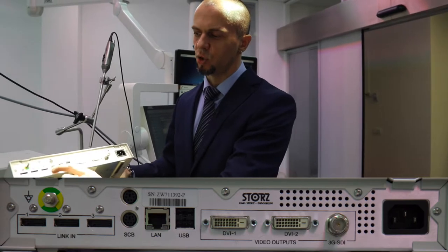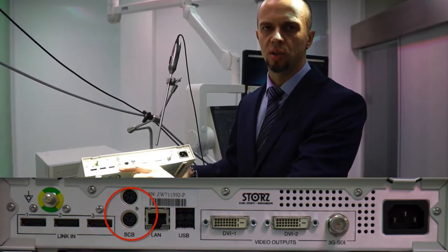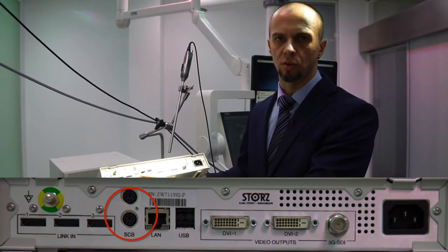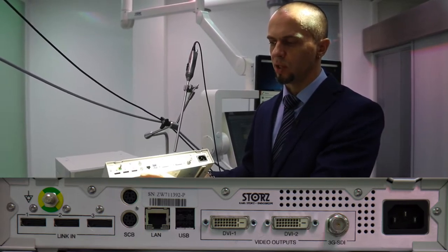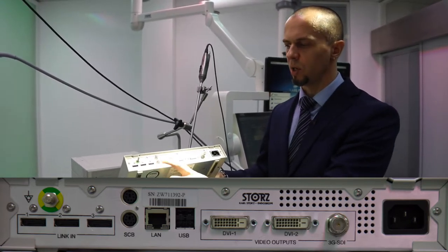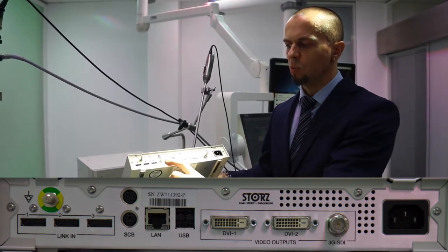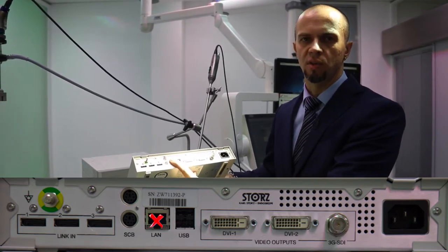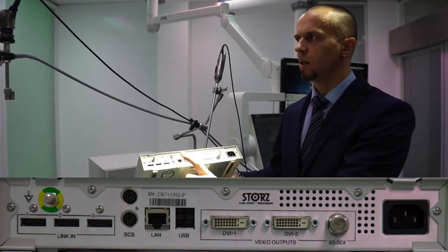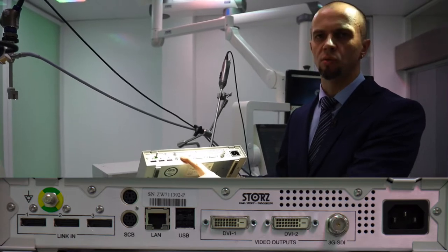Дальше, как и во всех ImageOne камерах, у нас идут SCB-разъёмы. Система поддерживает SCB-интеграцию. Правила подключения стандартные — цепочкой все аппараты собираются в SCB-сеть. LAN-модуль мы не задействуем в наших инсталляциях. Он технический, предназначен для различных сервисных работ системы, поэтому мы его не используем.